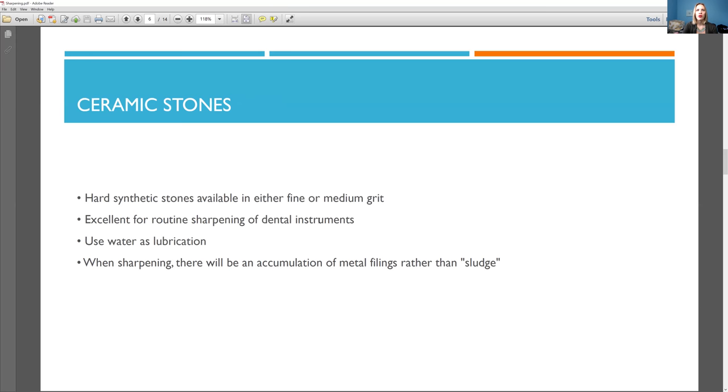Hard synthetic stones available in either fine or medium grit. Excellent for routine sharpening of dental instruments. Use water as lubrication, not oil like the last ones, but water. Okay. When sharpening, there will be an accumulation of metal filings rather than sludge. So again, make sure to put your instruments through the sterilizer because you don't want those metal pieces as you're cleaning to get stuck underneath the sulcus because where else would they go? They have to go somewhere. So put the cassettes through.